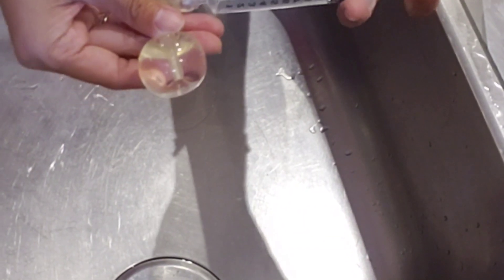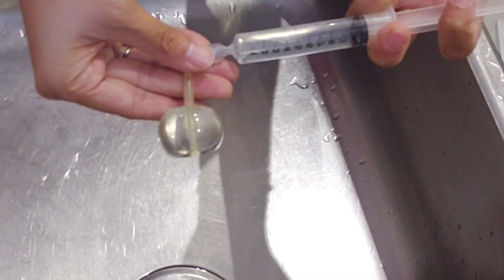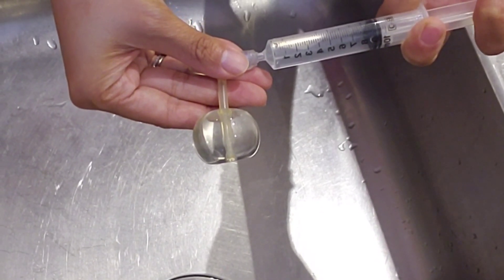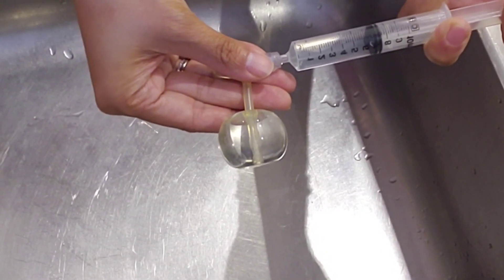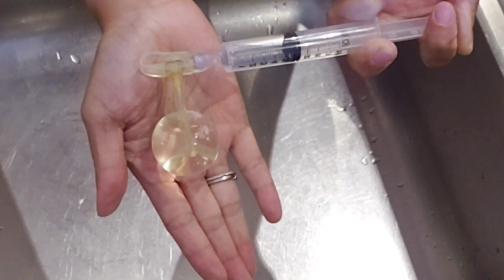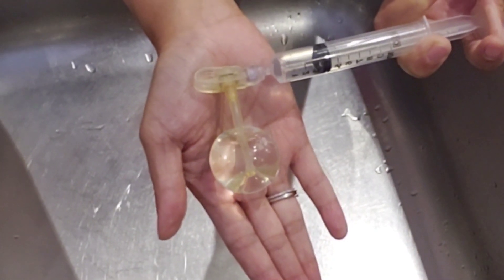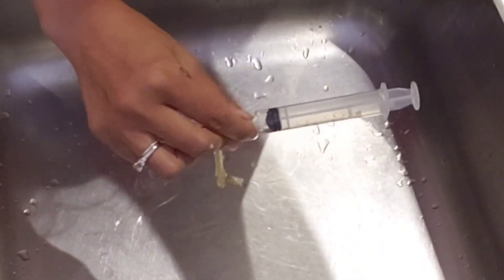It makes you wonder how these buttons get a little pinhole leak when they can take this much water. Keep going? Yeah, keep going! I'm nervous. Twenty-one — I'm proud of you for doing this. Twenty-two, twenty-three, twenty-four. I'm going to put on my goggles. Twenty-five. Oh my gosh, she's putting on her goggles — twenty-six, twenty-seven, twenty-eight. It exploded! It exploded!